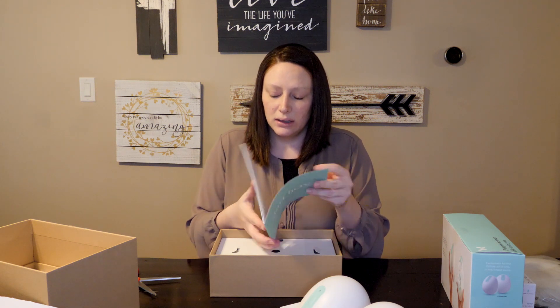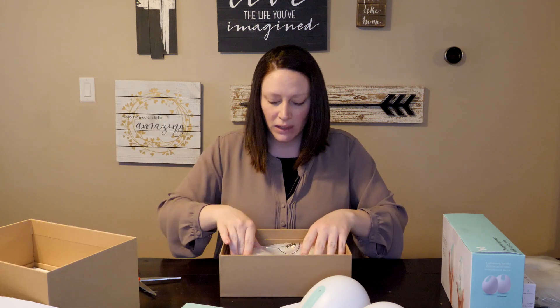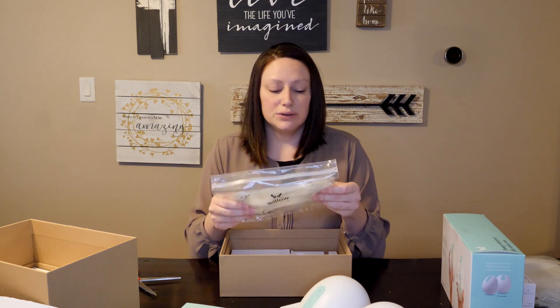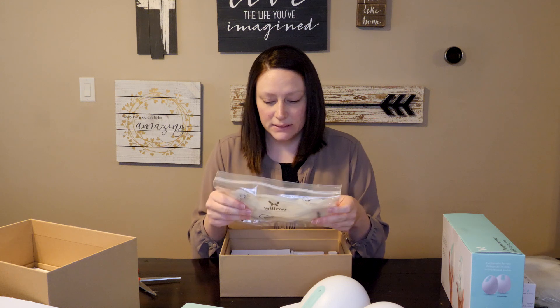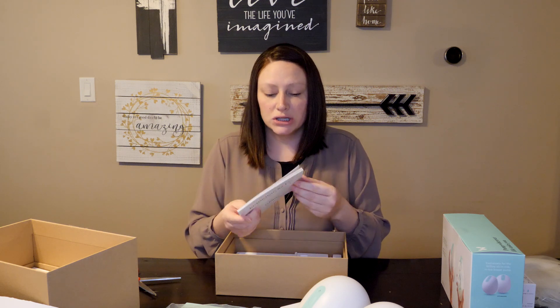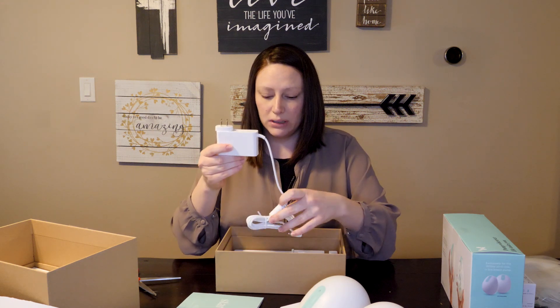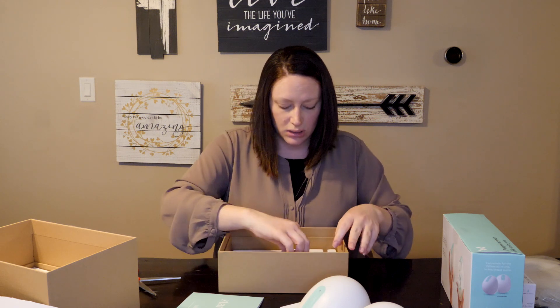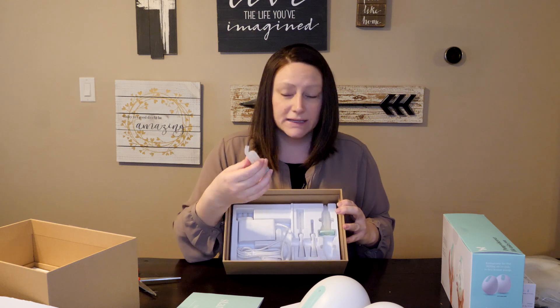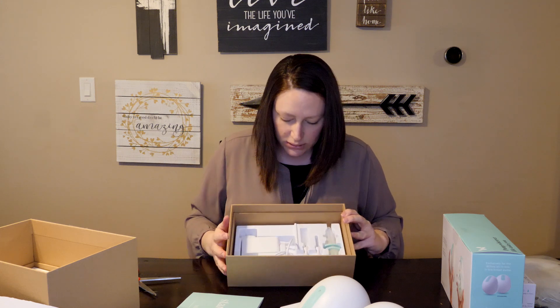There's a quick start guide that has a lot of good information in it. It comes with 24 of the bags, so you can get started even if you didn't order bags initially — they include 24 four-ounce bags. There's also a bigger book with more instructions, so there's the quick start guide and then the full instruction manual. It's got one charger, two little brushes for cleaning, and then these flex tubes — or flexi tubes, I believe is what they're called. And that is everything in the box.